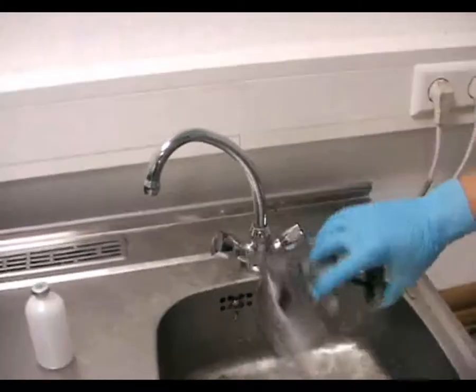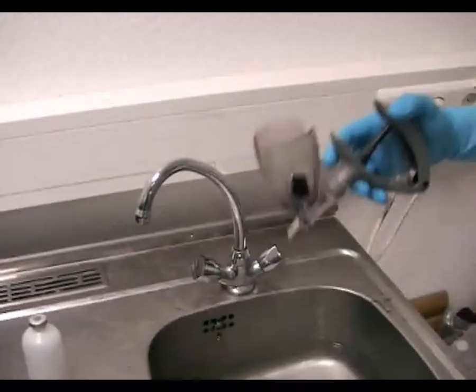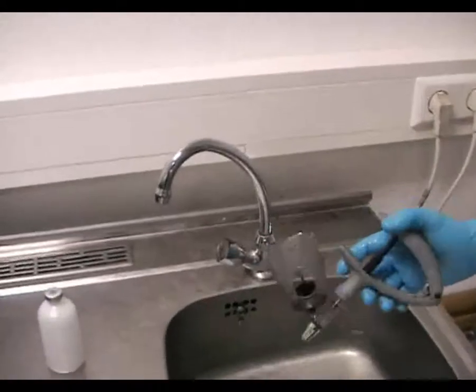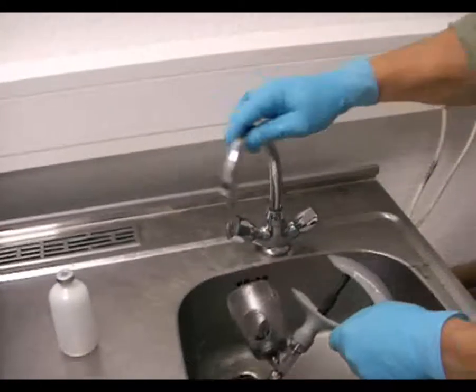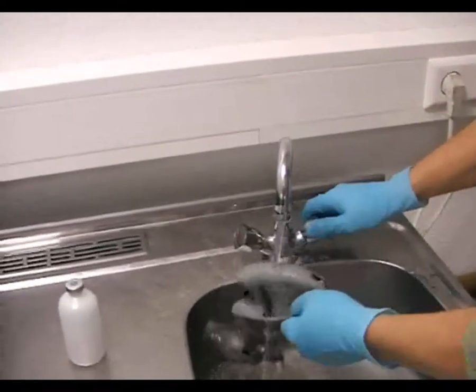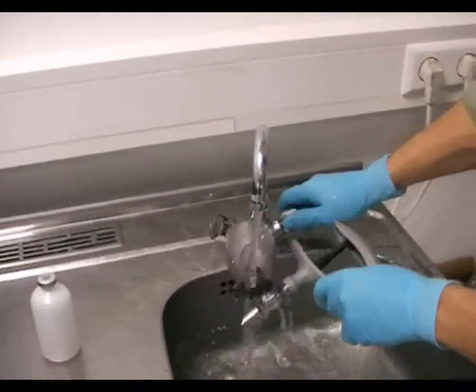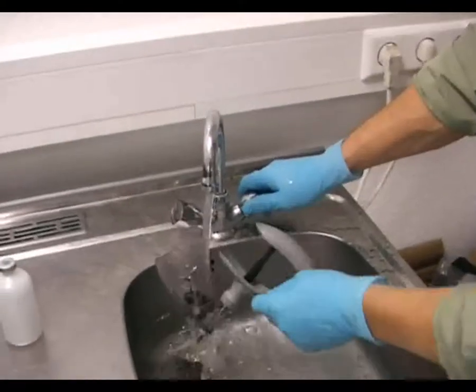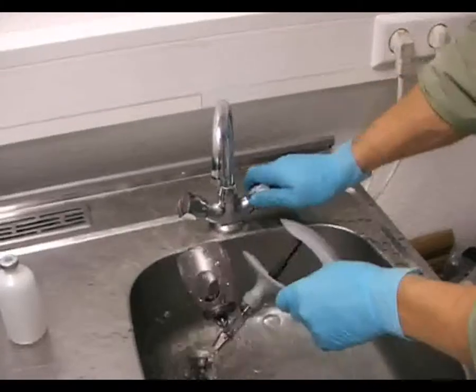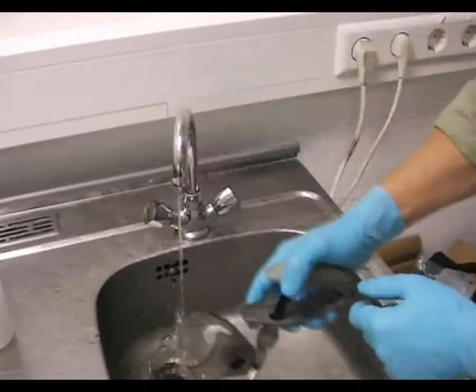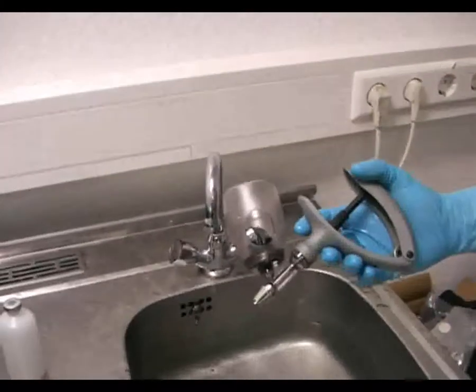Spritze abtrocknen, ausspülen nochmal über den Wasserhahn mit lauwarmen Wasser. Diese Vorreinigung würde normalerweise ausreichen, um die Spritze nun erneut einzusetzen.